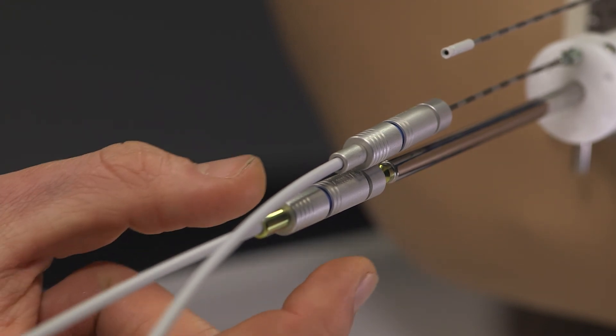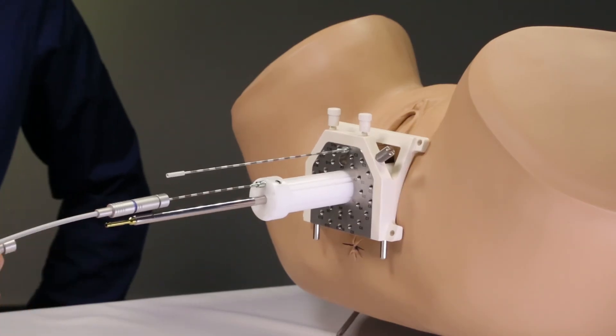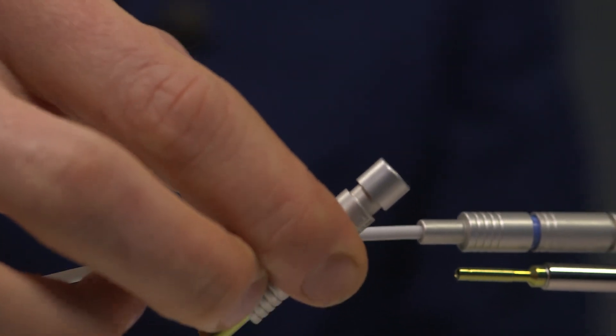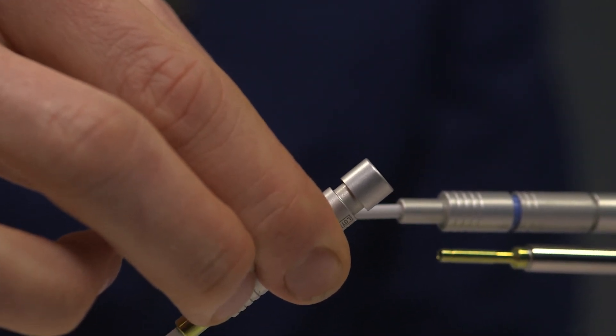Removing the transfer tubes is easy. Just pull gently at the middle ring and please note that pulling at the front will not release the transfer tube.